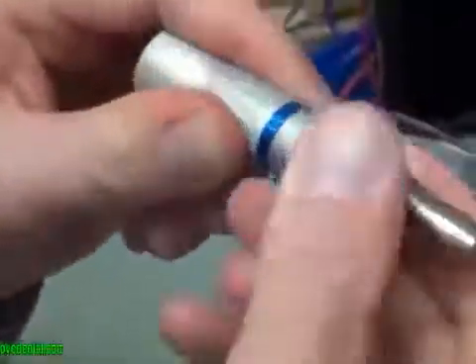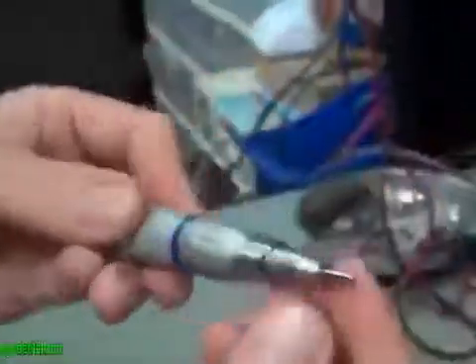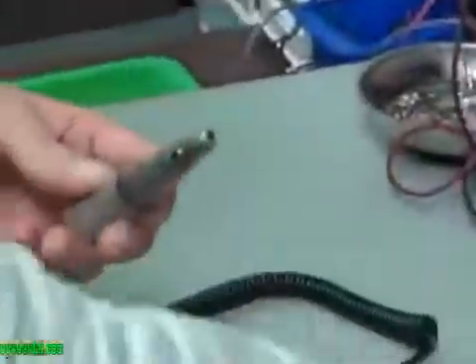So the first thing that you're going to want to do is turn this until it fully snaps to the unlock position. From there you can go ahead and remove the placeholder pin. This is no longer necessary, so we'll go ahead and set that aside.